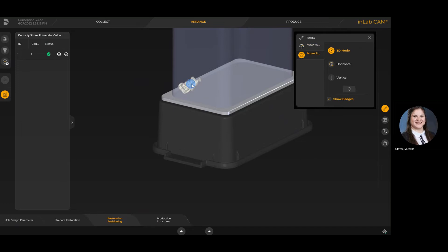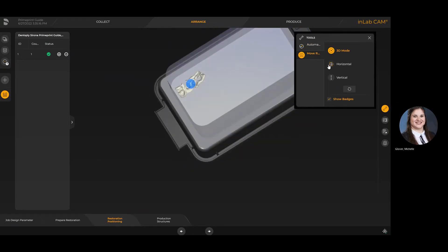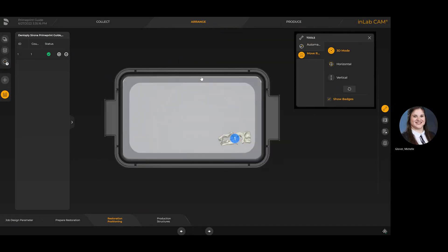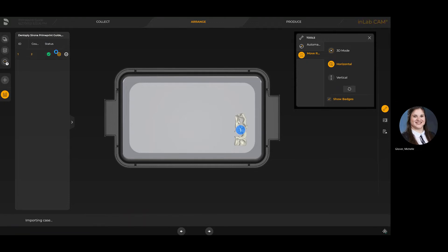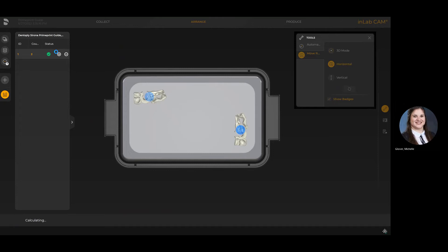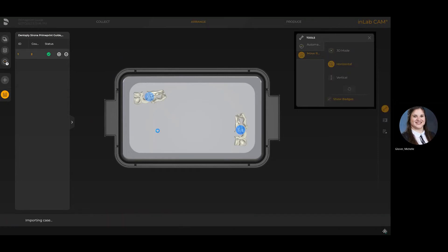I'm going to add a few more of the same job, which I will change to optimize footprint and height for speed, just so you can see how it looks in the produce stage. On the left-hand side, I'm adding a couple more of the same case so you can see the differences between the three nesting options.